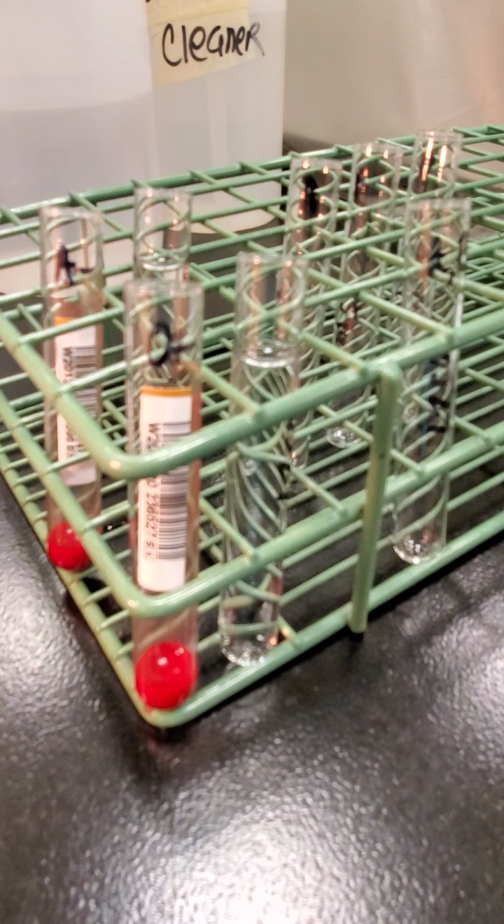And the reason being, we don't want to give a patient the chance to form an anti-D antibody, so we really want to make sure that the unit is Rh negative, so that when we transfuse it into an Rh negative patient, there's no chance of them being exposed to the D antigen and forming that anti-D. But for an Rh positive unit, the only patients we're going to be transfusing those into are Rh positive people. So it doesn't really matter to confirm that Rh status.